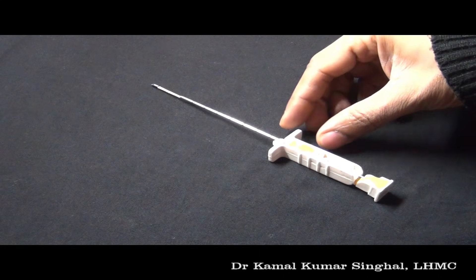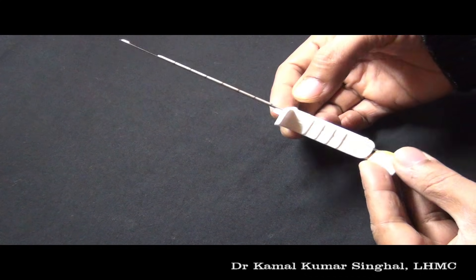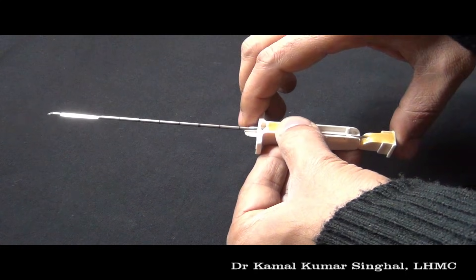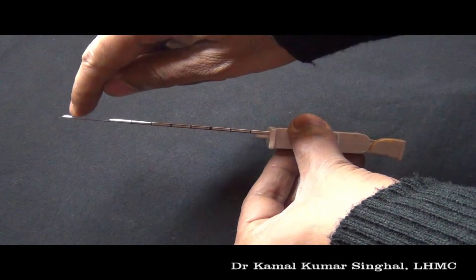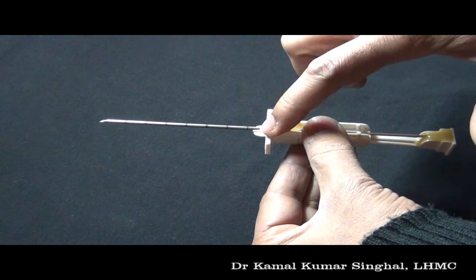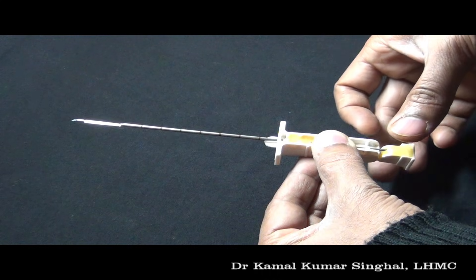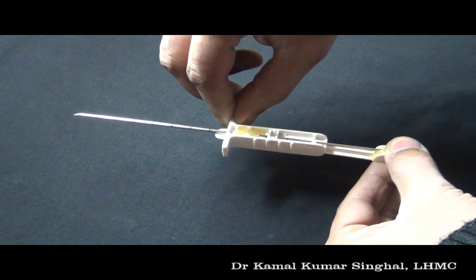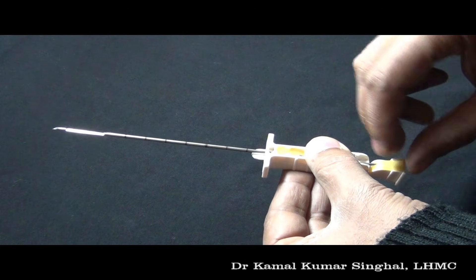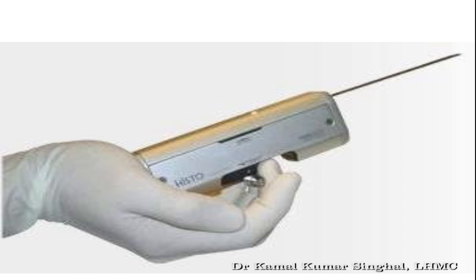This is a tru-cut biopsy needle. It has two parts: a central needle and an outer sheath. The needle has a slot into which the specimen fits, and the outer sheath acts as a cutter. In a biopsy, the first step is to enter the needle in a closed position. The inner needle is then pushed in and soft tissue fits into the slot. Keeping the needle stable, the outer sheath is pushed forward. Finally, the needle is taken out in the closed position and the biopsy specimen is removed from the slot using a needle tip. A tru-cut biopsy gun has simplified this process — it does all these steps simply on pressing a button.